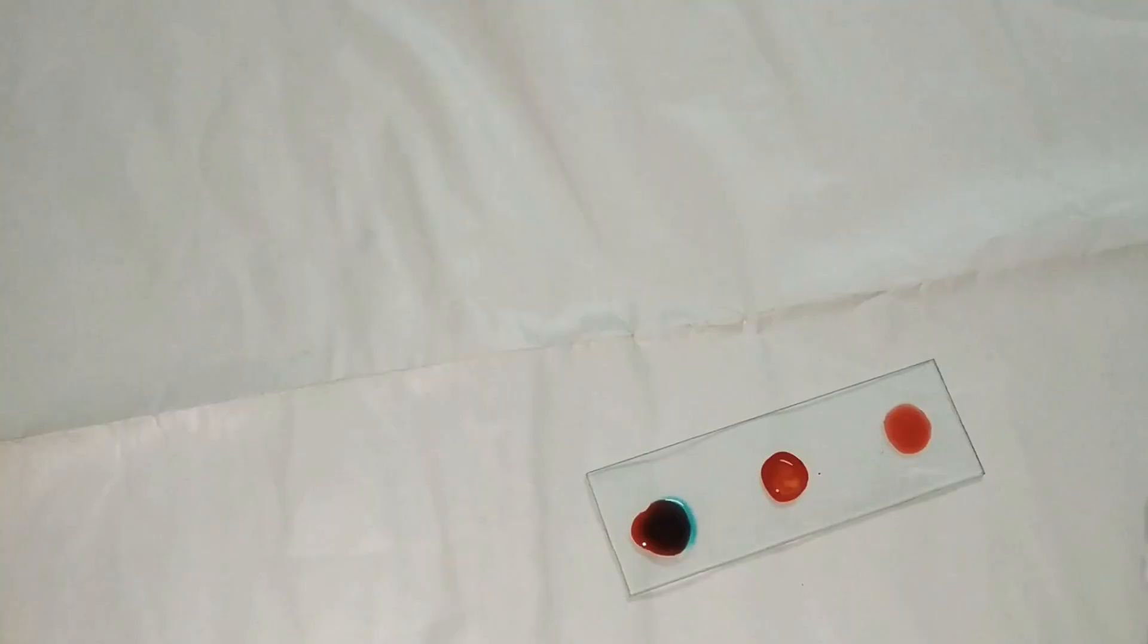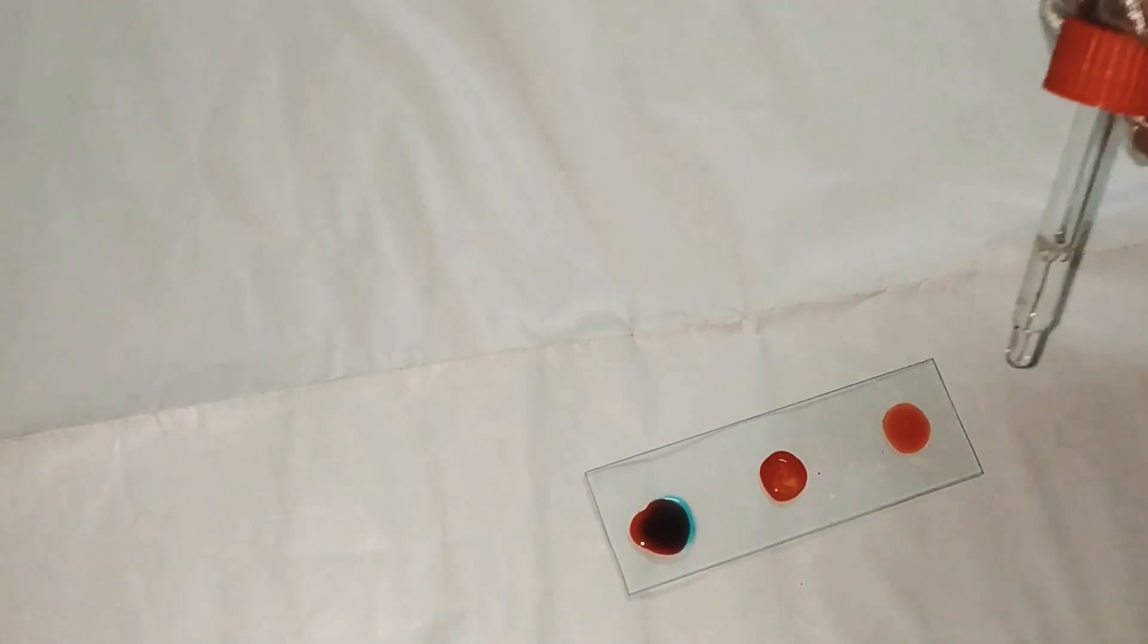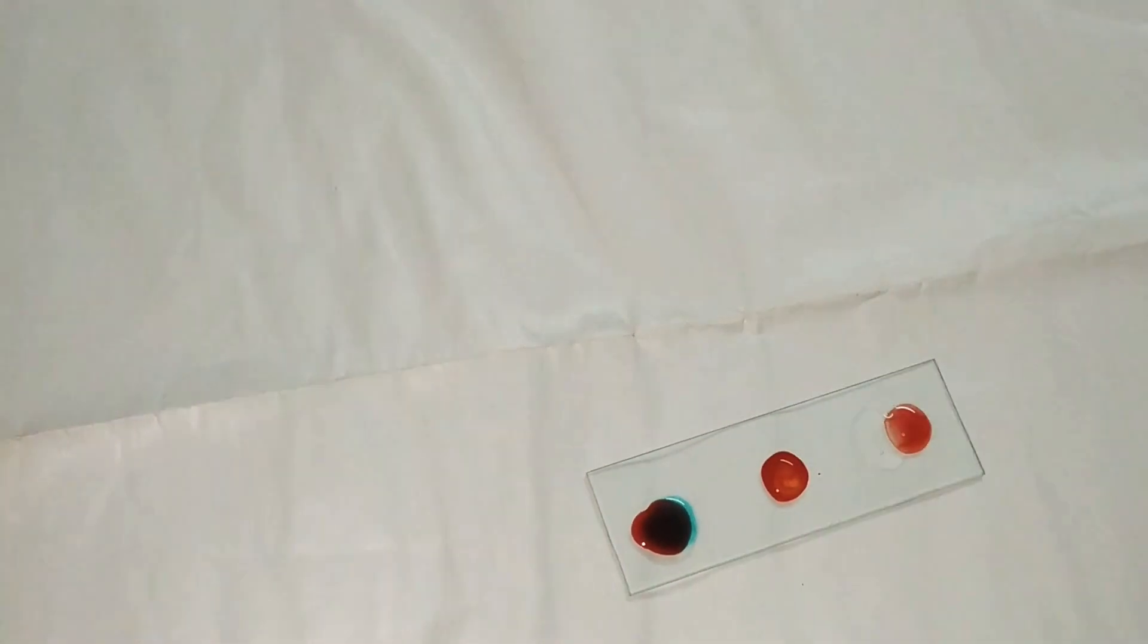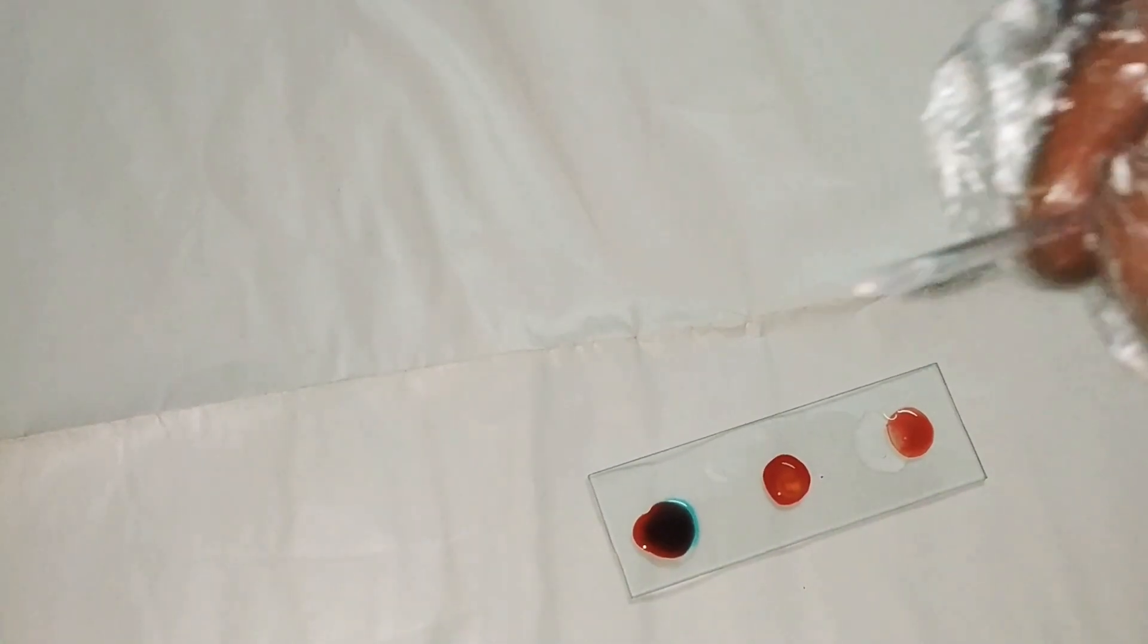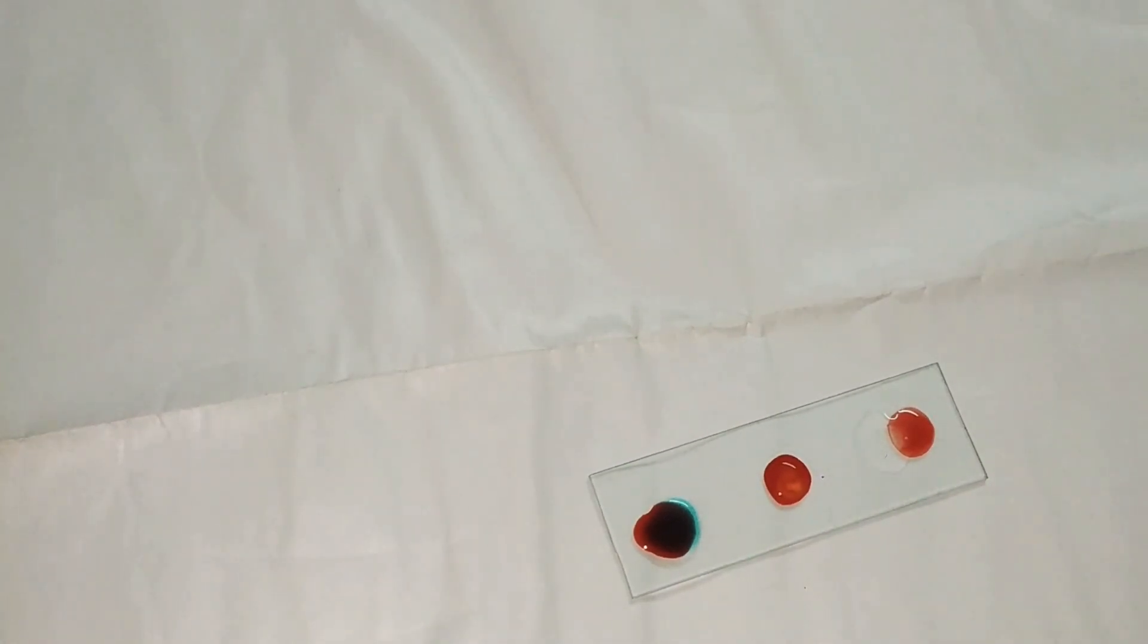Now with the help of the applicator stick, I'm going to mix the three drops of blood with their antibodies. See here carefully.